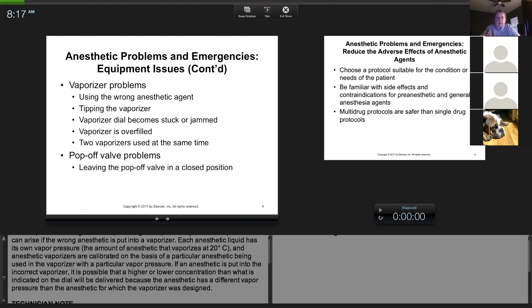You also don't want to overfill the vaporizer because sometimes it's hard to see the full line. Be careful when you're filling it because it can backflow into the internal parts. Never go above that full line.